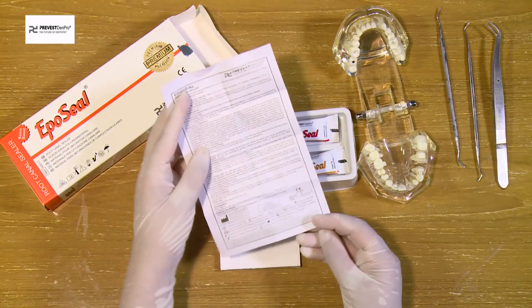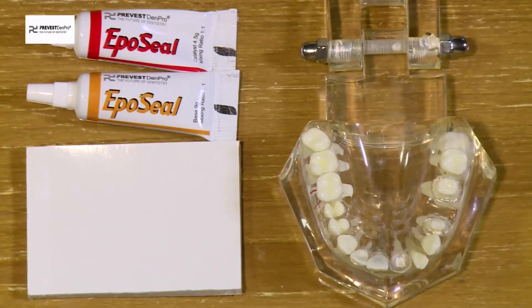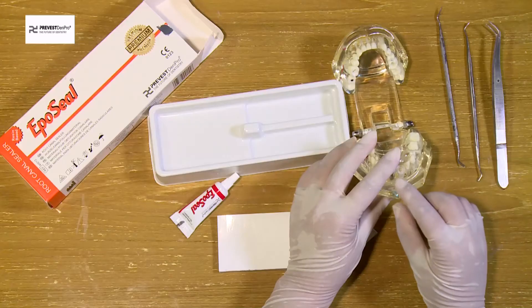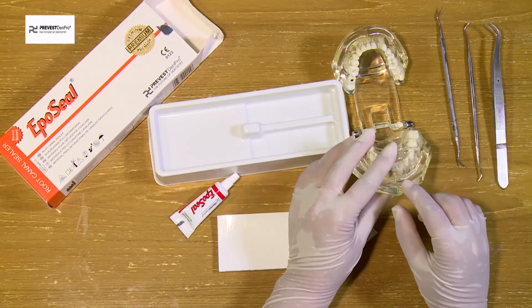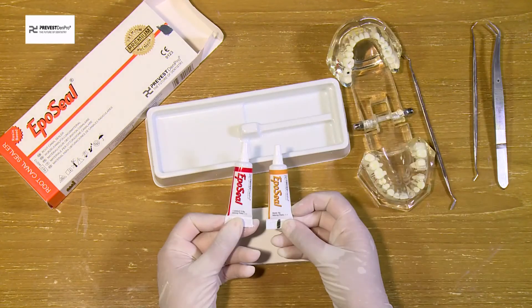This is how we use it. Here I have a simulated endodontic block.